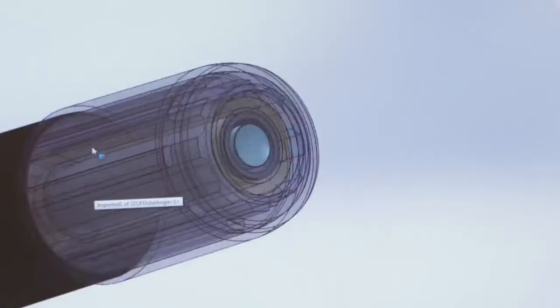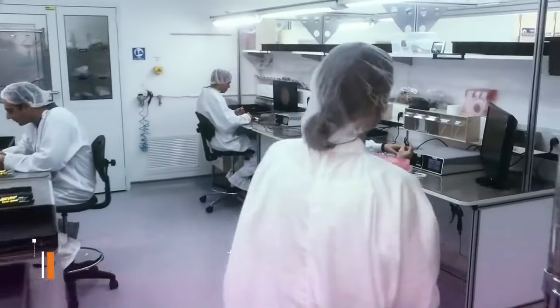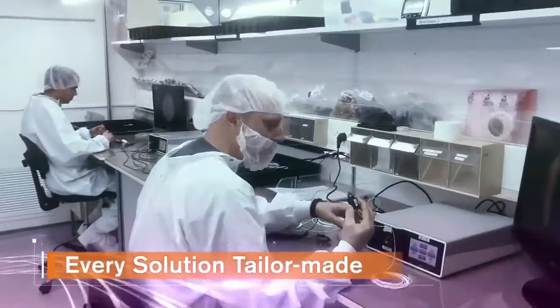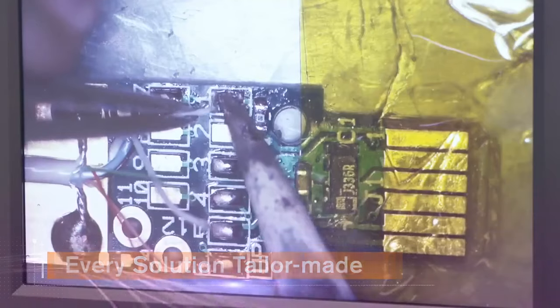With in-house design, production, and integration, ScoutCam tailor-makes every micro-visualization component to meet the requirements of specific customer products.